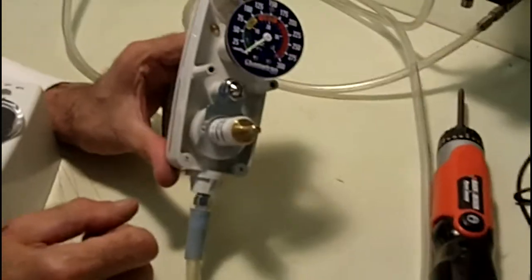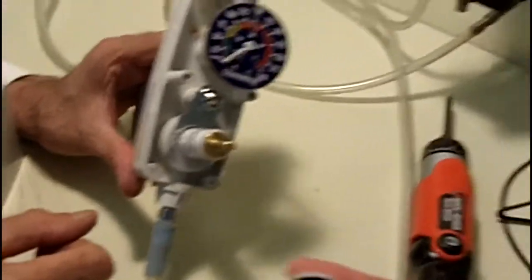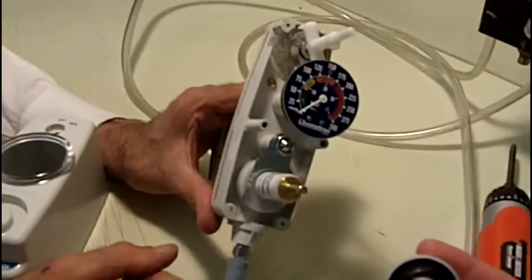One thing I want to mention as well is that this is the case with any suction regulator. Any suction regulator out there on the market has components like this that over time could wear, could cause your set level to change.